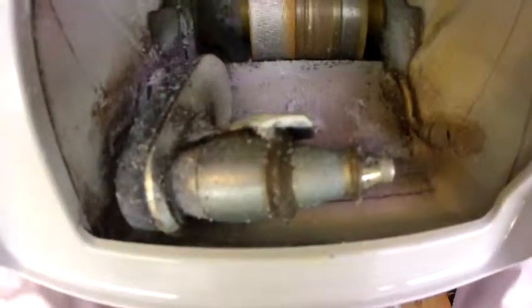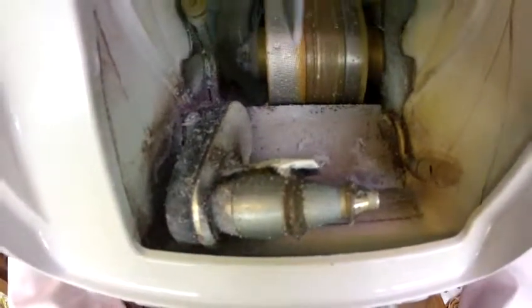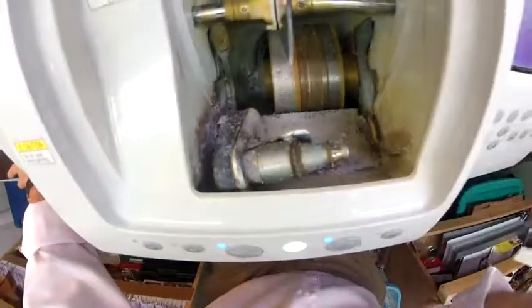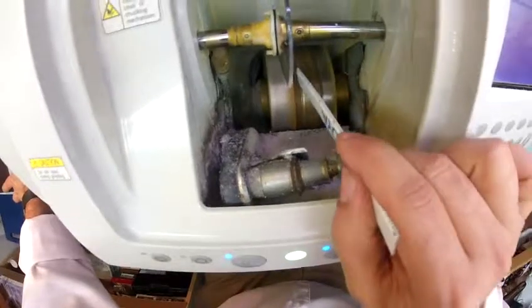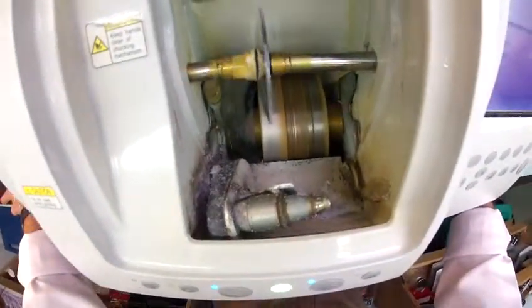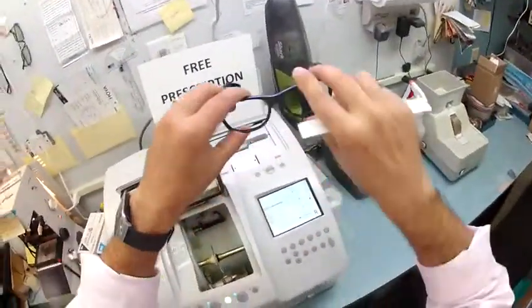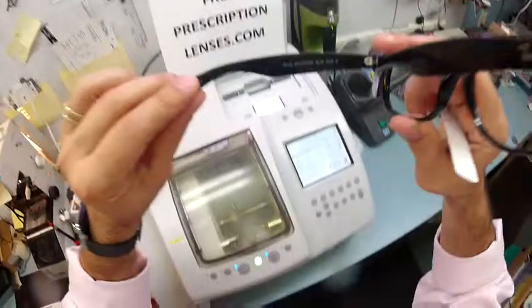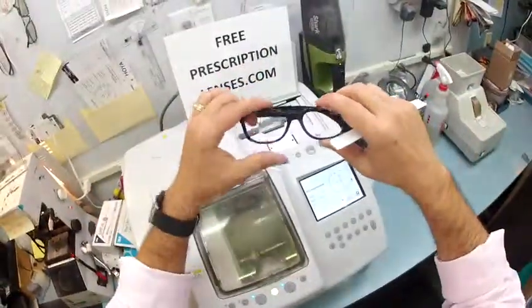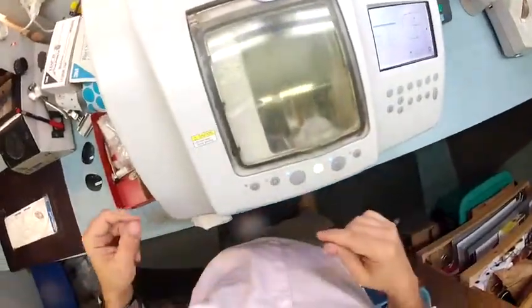The actual cutting wheel is down here on the bottom left — that lighter color wheel. It's like heavy grit sandpaper. It's going to grind away your polycarbonate material until it's the final shape, and this center wheel with that little channel — that little valley — is what puts the bevel onto the lens so it stays inside the bevel of the frame. And you're going with the classic 901, the classic shiny black — the standard bearer of every color.